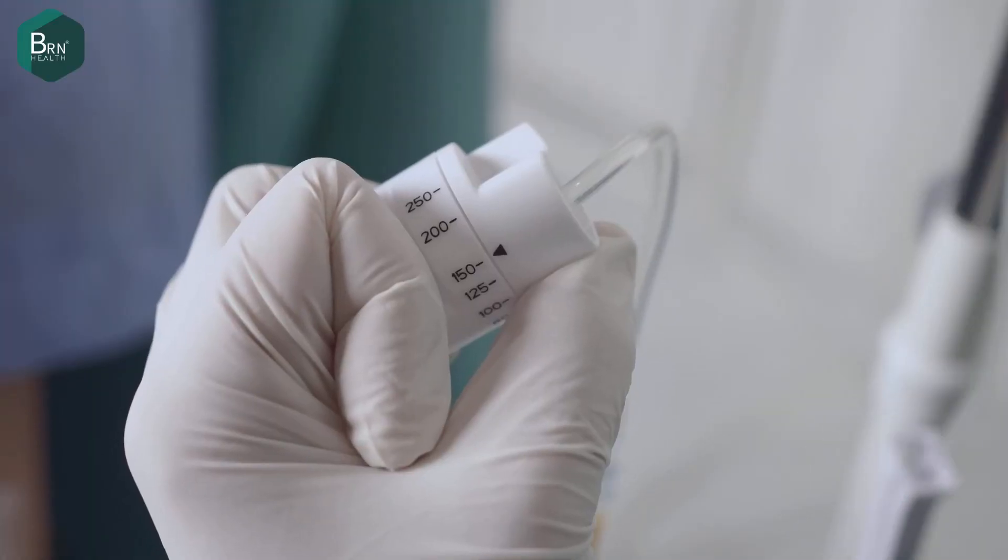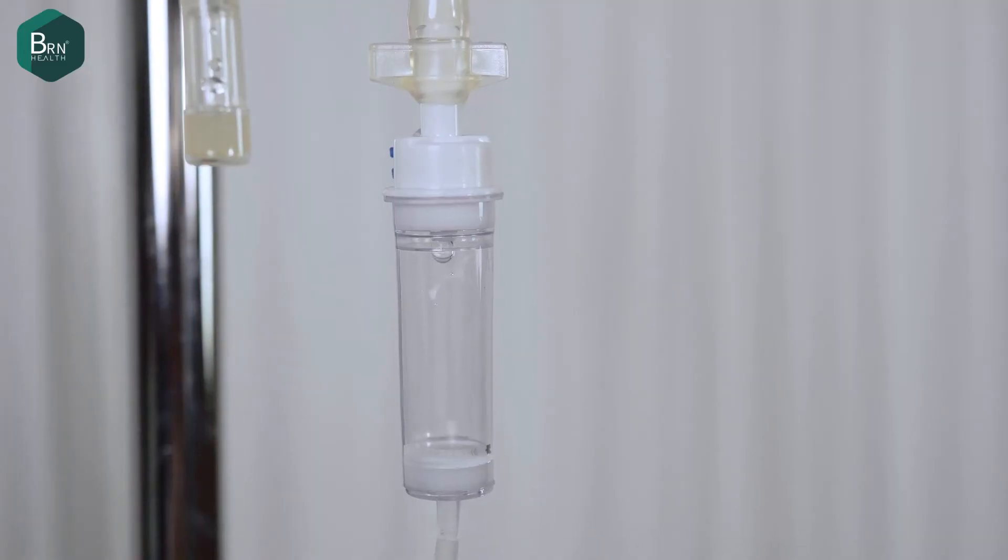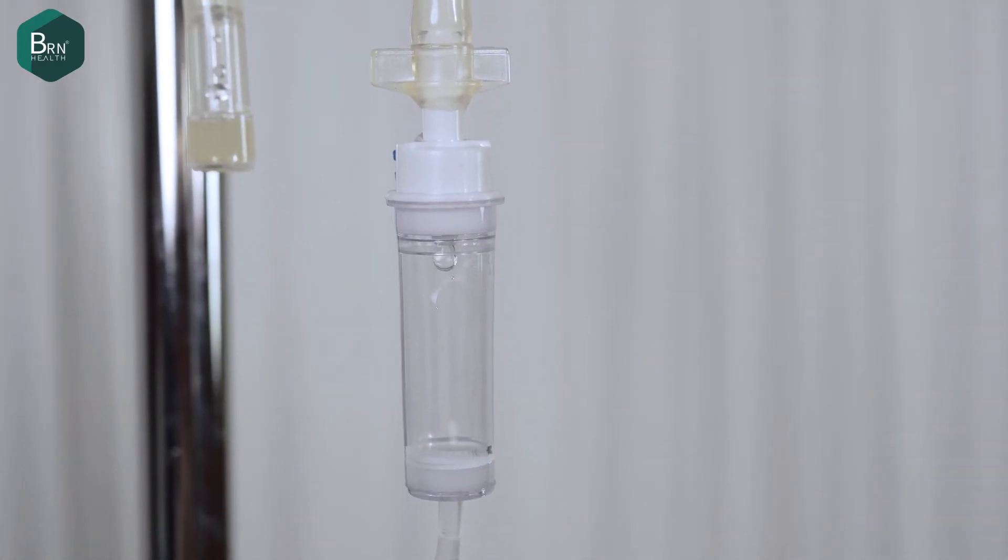Nurses and doctors can take quick action when using a one-handed cylindrical IV flow device to control the amount of serum fluid given to patients.